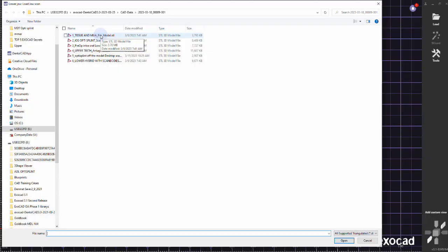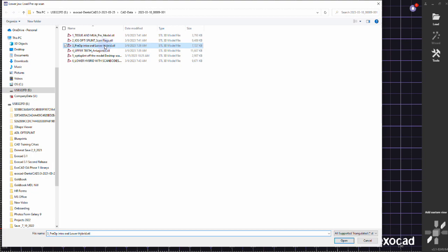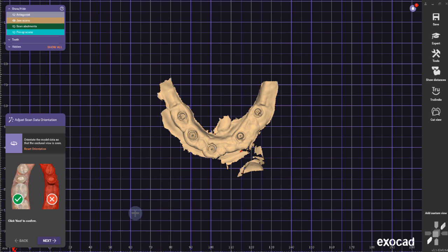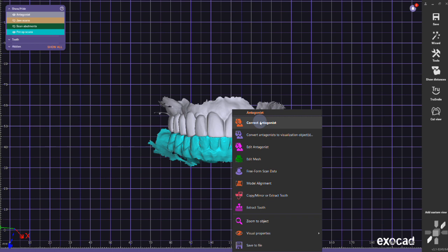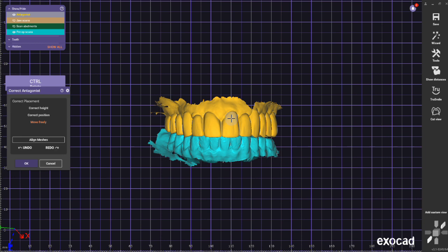To be able to import all the scans, go to images and documents. I usually drag them into exocad, click design, and now I can import all the scans one by one. The important thing here is when you align or orientate the model, make sure if you have a lower arch that is kind of a U shape, click next.